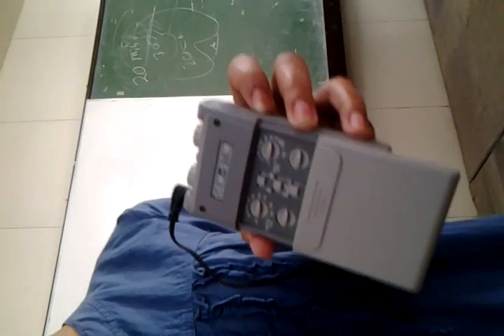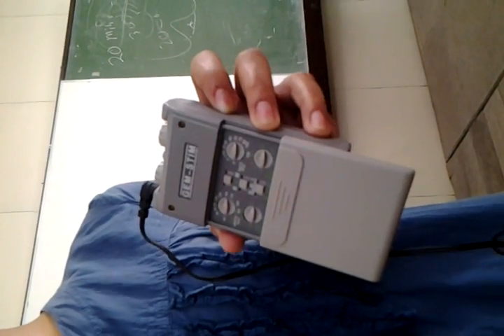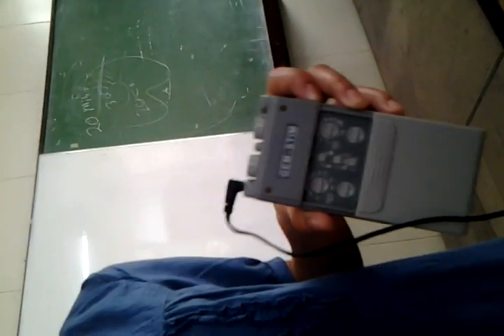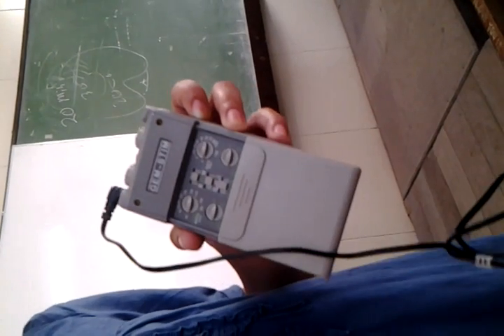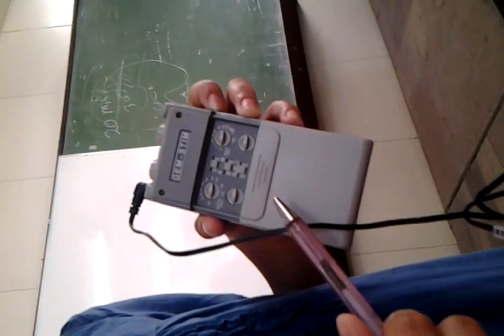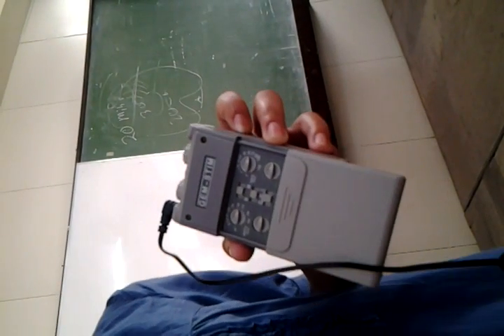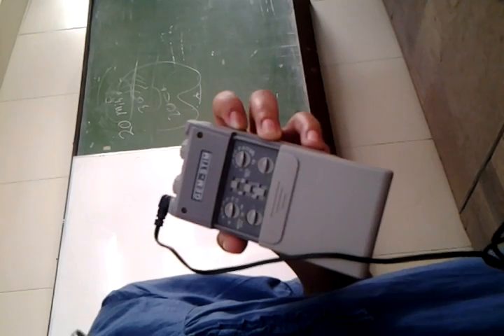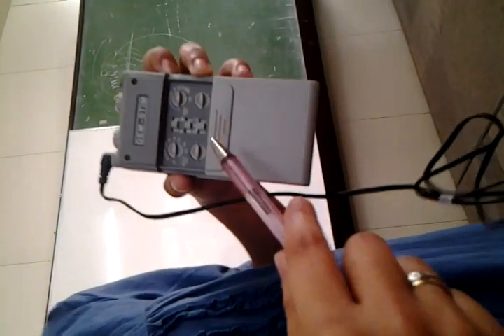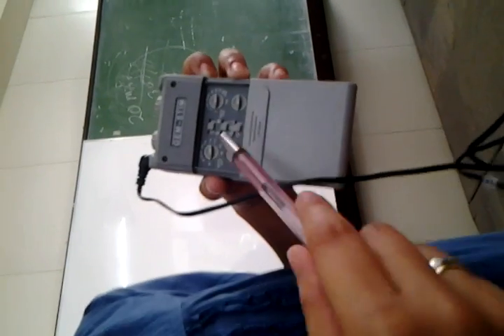Okay. So you have at least 6 or 7 types. You have hyperstimulation, you have conventional, you have burst, and you have modulation. Each of which has a different frequency and different pulse width in use. But all of them are for pain reduction, okay, for pain reduction.